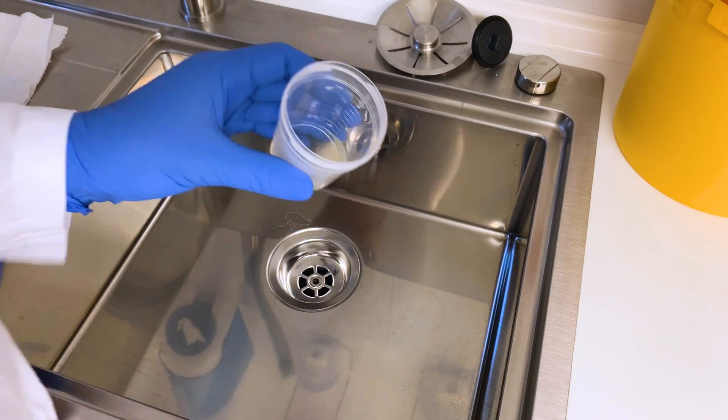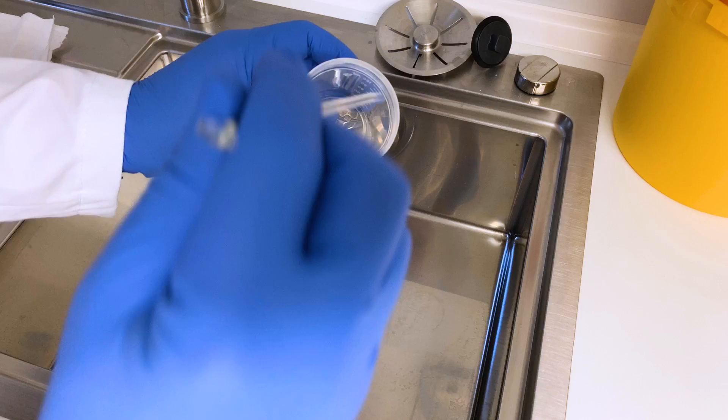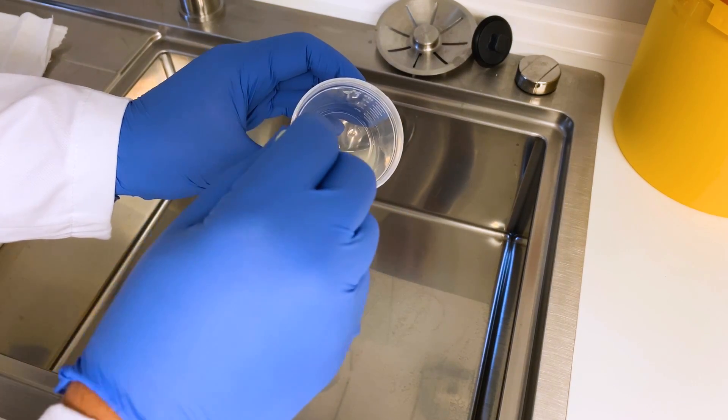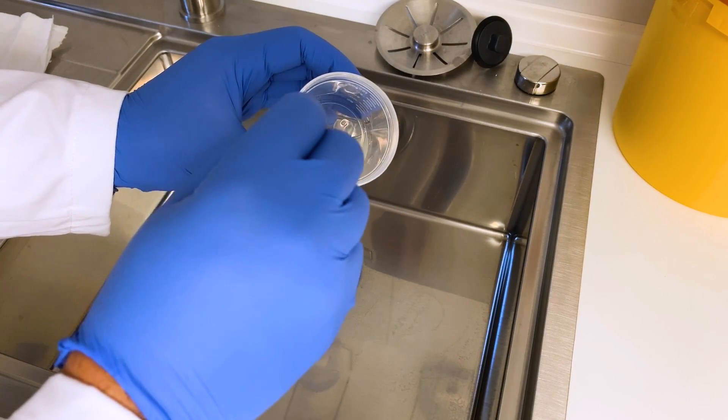Directly after ejaculation sperm is like a coagulated mass so I'm waiting for around 30 minutes to test whether liquefaction has taken place.